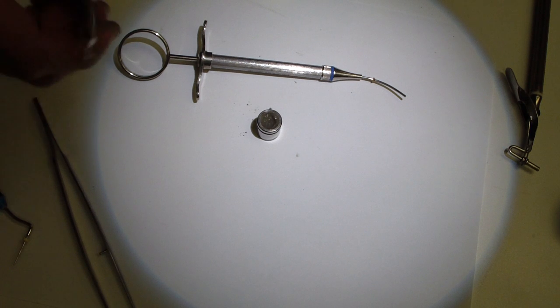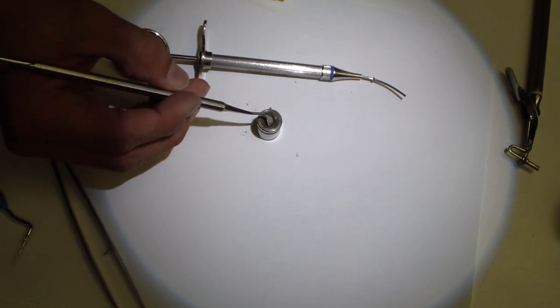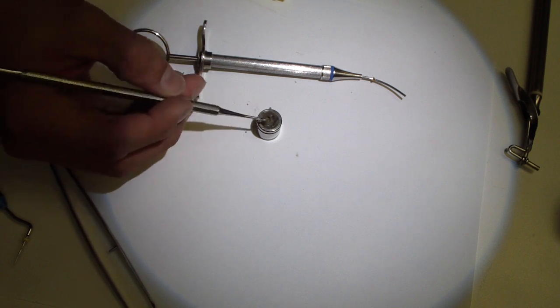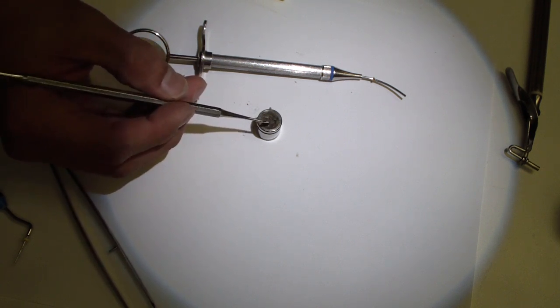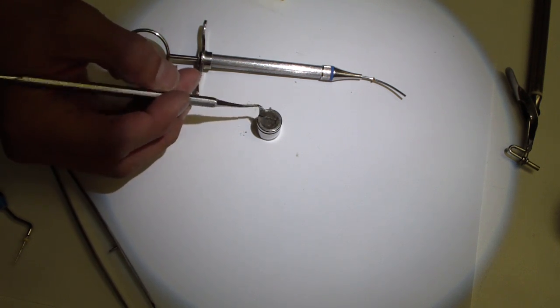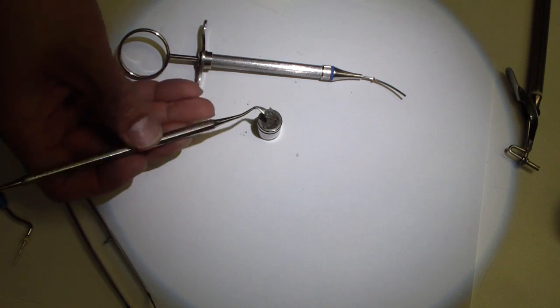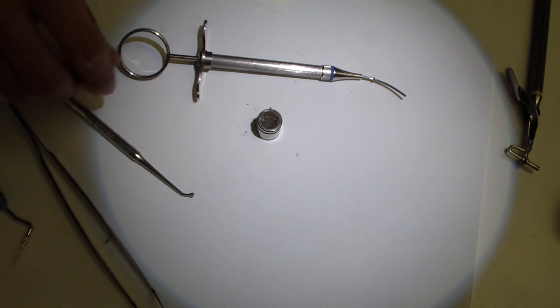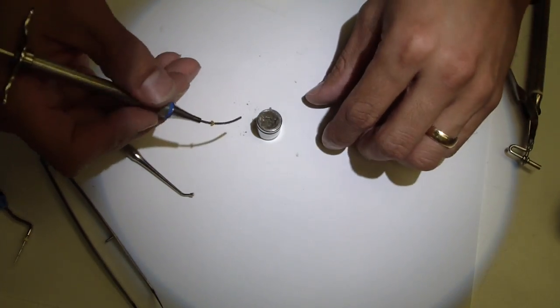Okay, let's try that now. So you can see it's dried out a little more there. There we go. So the consistency, I'd have to say it's like sand. You pour water on sand, and then the water kind of flows away, but it's still there, but it's not on the surface. You know, it's kind of dried away. That's kind of the consistency you want.